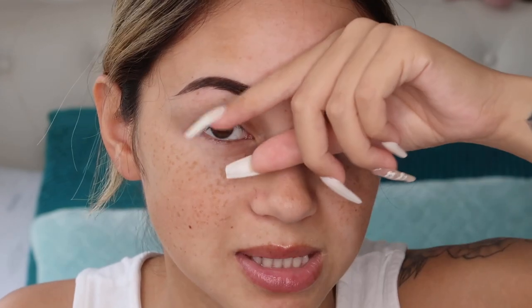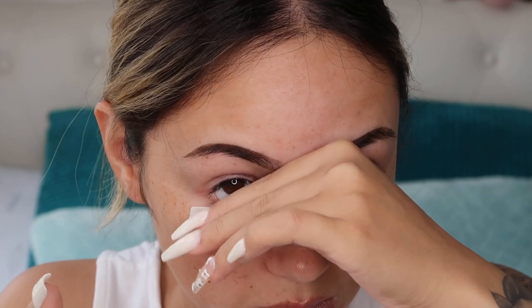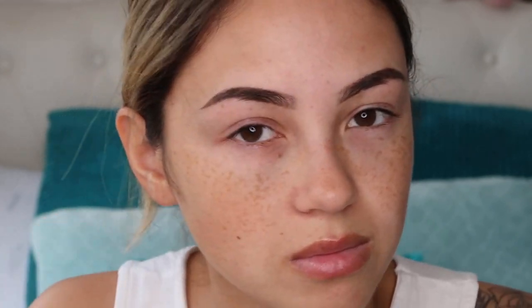Now for the right eye. People normally switch hands but I can't really coordinate with my left hand. This is the eye I struggle with because it's on this side of my face. Oh my god, I got it in first time as well! Normally that takes me a few goes, but straight in.